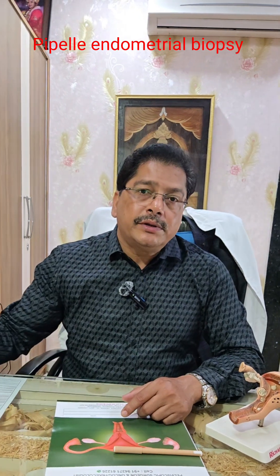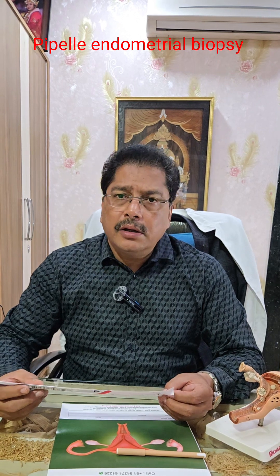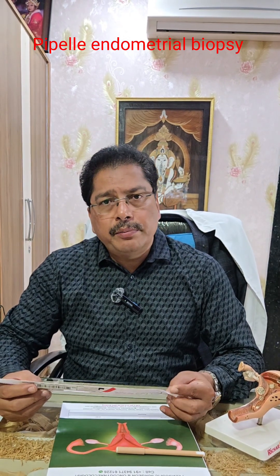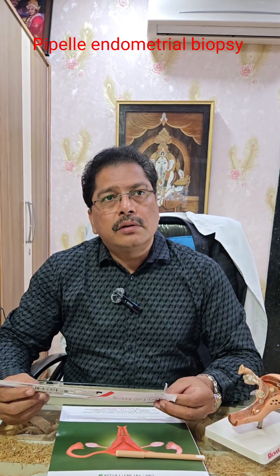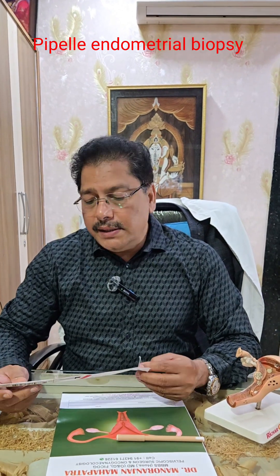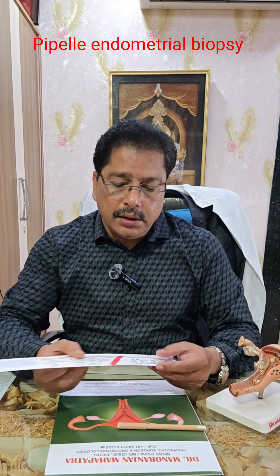So in between, as an OPD procedure, what we conventionally do for getting the endometrial sample is the Pipelle biopsy. This Pipelle biopsy is an absolutely non-invasive or semi-invasive method. We perform it as an OPD procedure for working-type patients, so the patient can immediately go home. This is a Pipelle cannula and we get it from a vendor like PB India.